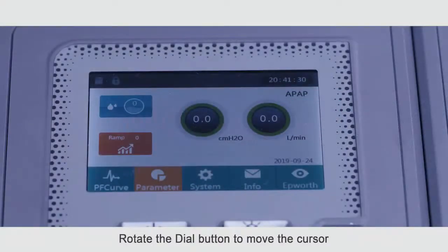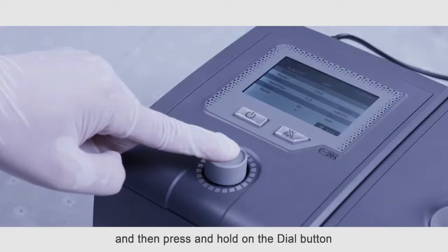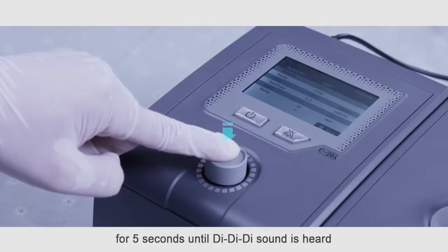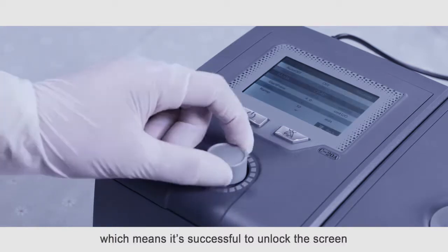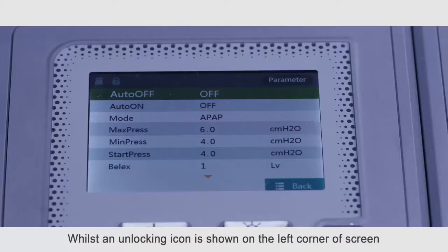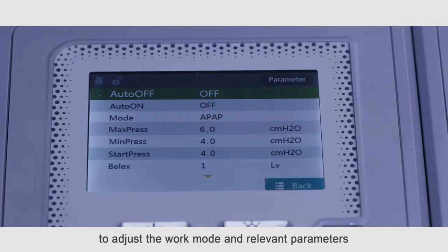Rotate the dial button to move the cursor to the option parameter as its front turns yellow, and then press and hold the dial button for 5 seconds until a DDD sound is heard, which means it's successful to unlock the screen, whilst an unlocking icon is shown on the left corner of the screen. After unlocking, we can enter the parameter interface to adjust the work mode and relevant parameters according to the doctor's order.